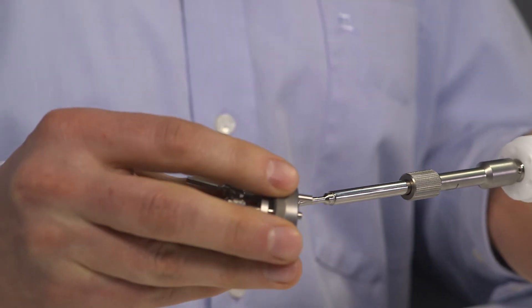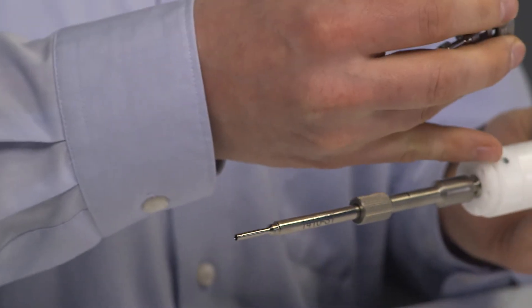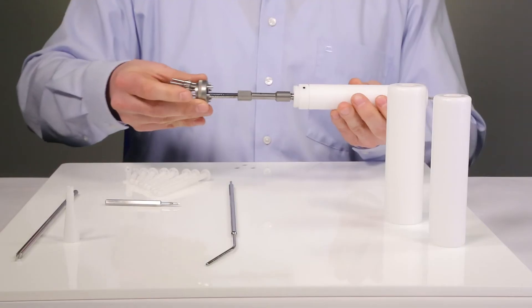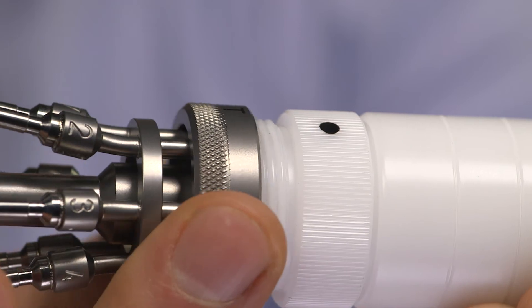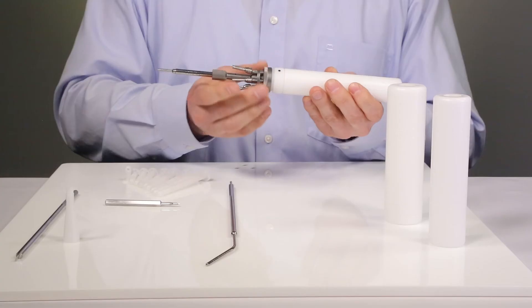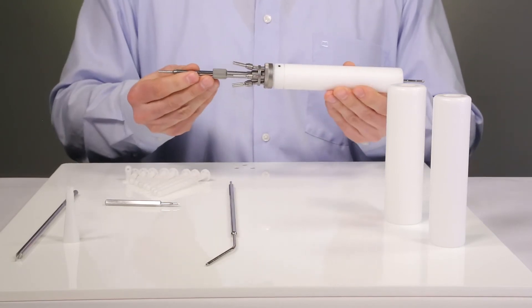The long pin on channel 2 of the docking unit must be aligned with the black dot on the applicator body. The applicator body is screwed together with the docking unit. Now the assembly is complete.